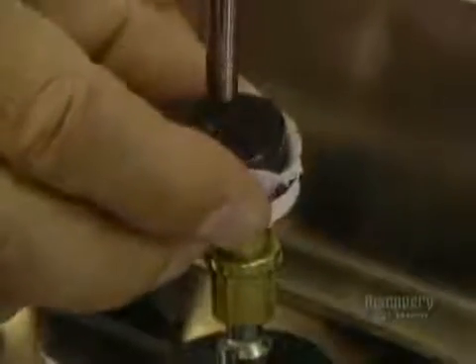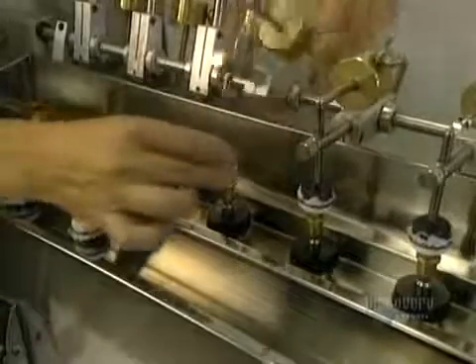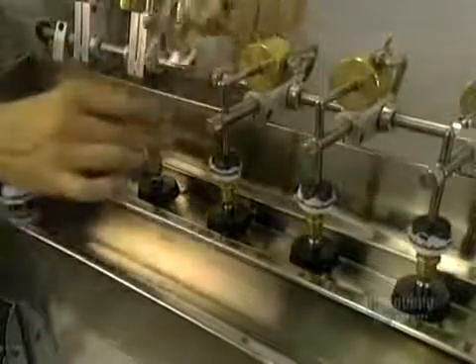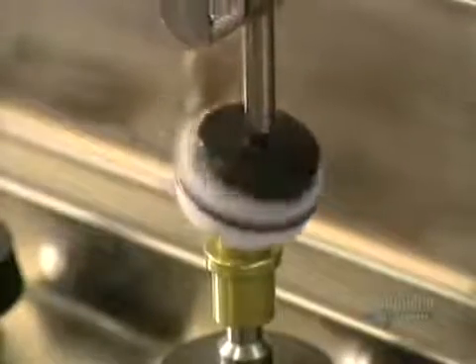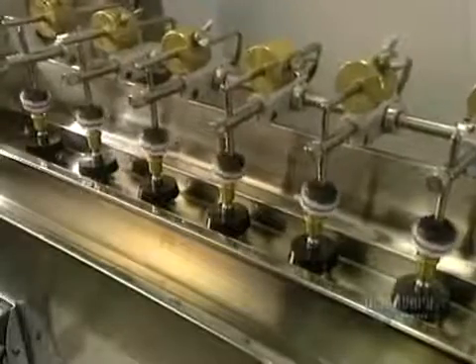They now polish the outer surface of the lens. This polishing, done at high speed, calls for an abrasive paste, some oil, and a small polyester cotton ball. This apparatus polishes several lenses at the same time — a step that takes only 60 seconds.